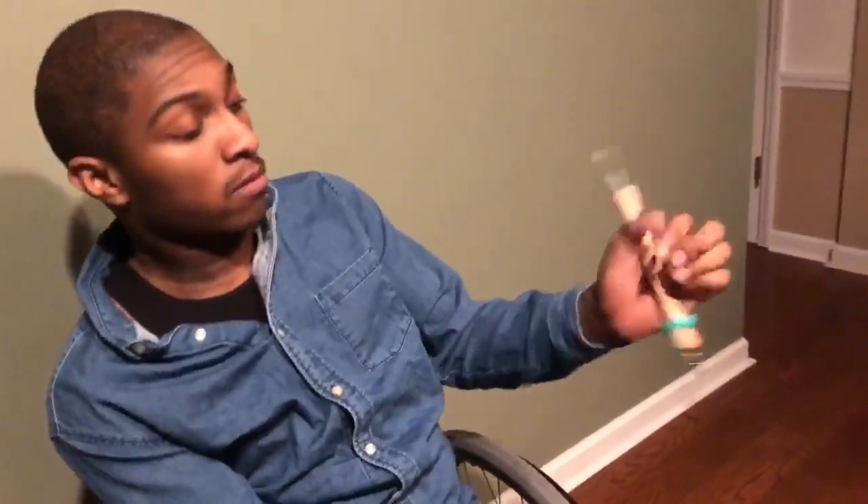Hopefully wherever you're going you're cool with somebody and you can say, 'Hey, can you help me out with my shirt?' This green thing I mentioned at the beginning — if you want to purchase one, you can go on Amazon and it's called Easy Hold, E-A-Z-Y Hold.